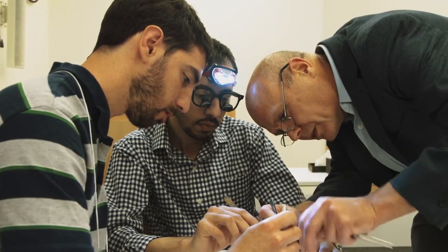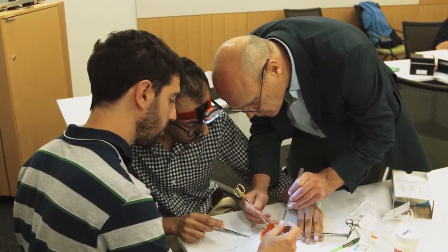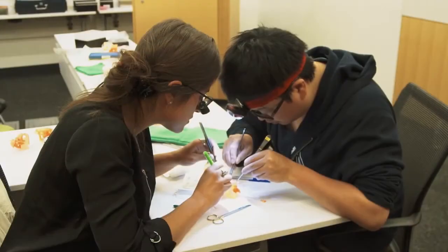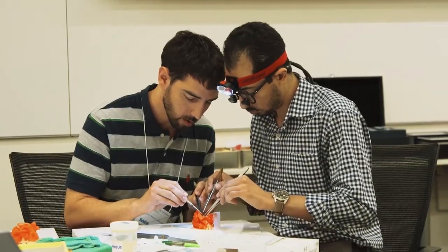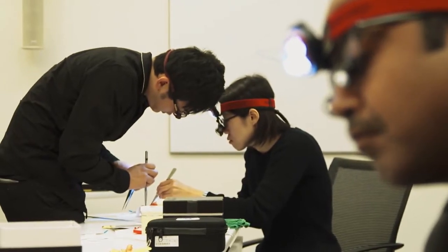Here's an opportunity with 3D models to make the mistakes on the models, and then when you go and perform on a baby, you're an expert performer already. It's just fantastic for these trainees to have an opportunity to get the feel of it and actually do the real surgery, so that when they do it on a baby, it's much more familiar and much safer.